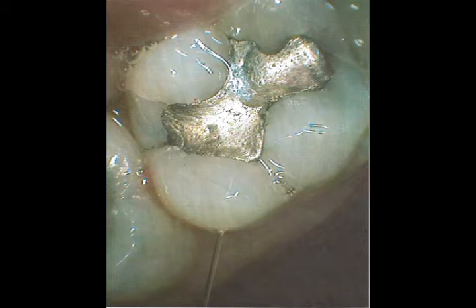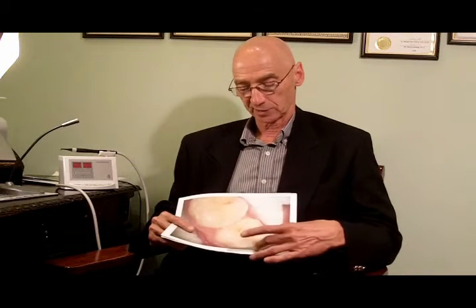This hole inside of the tooth is filled, and because of the lack of strength here and cracks in the tooth, this is eventually going to run into a crown. The thing I like about this cavity detector is being able to find the fillings that are this small — they can be easily filled, the tooth will maintain its strength, and it likely will never have to have a crown or any kind of major work on it. So it's a win-win situation. It's a good service for my patients, and that's why I have it here.